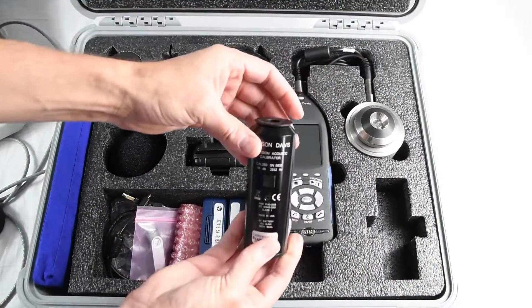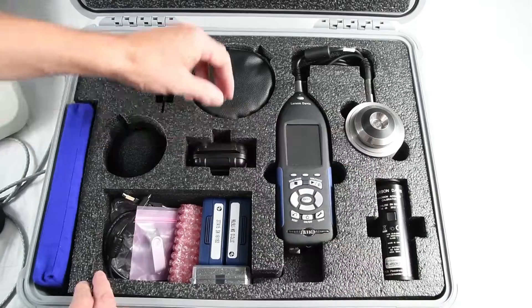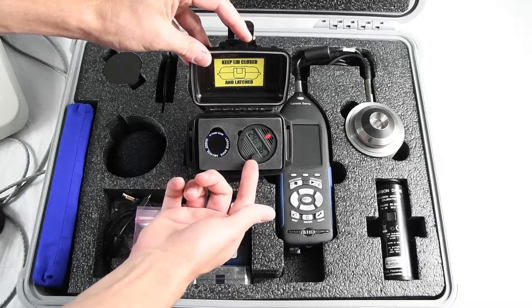Every system includes the Cal250 Precision Acoustic Calibrator to calibrate your microphones. For bone vibrator testing, there is the AMC493B artificial mastoid coupler with included case and a temperature and humidity gauge.